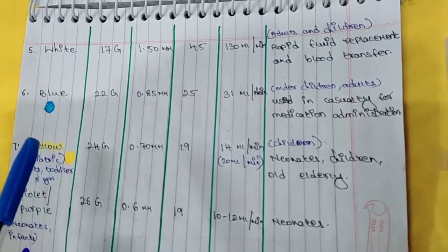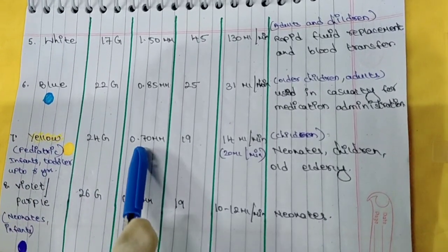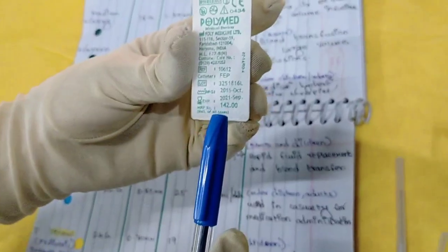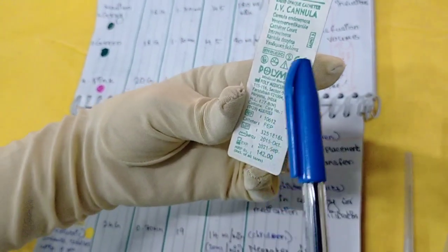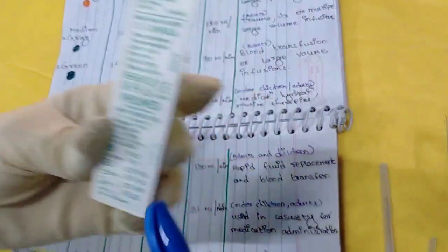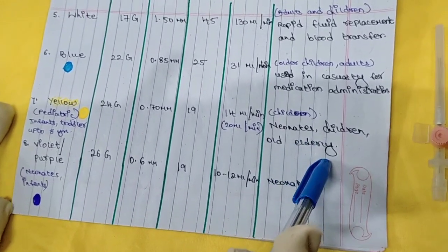Then next is the yellow cannula, which is called the pediatric cannula — this is 24 gauge. The outer diameter is 0.7 mm and the length is 19 mm. As you can see, behind the cannula cover the gauge, length, outer diameter, and flow rate are all mentioned. This pediatric cannula is used in children, neonates, and older elderly people.